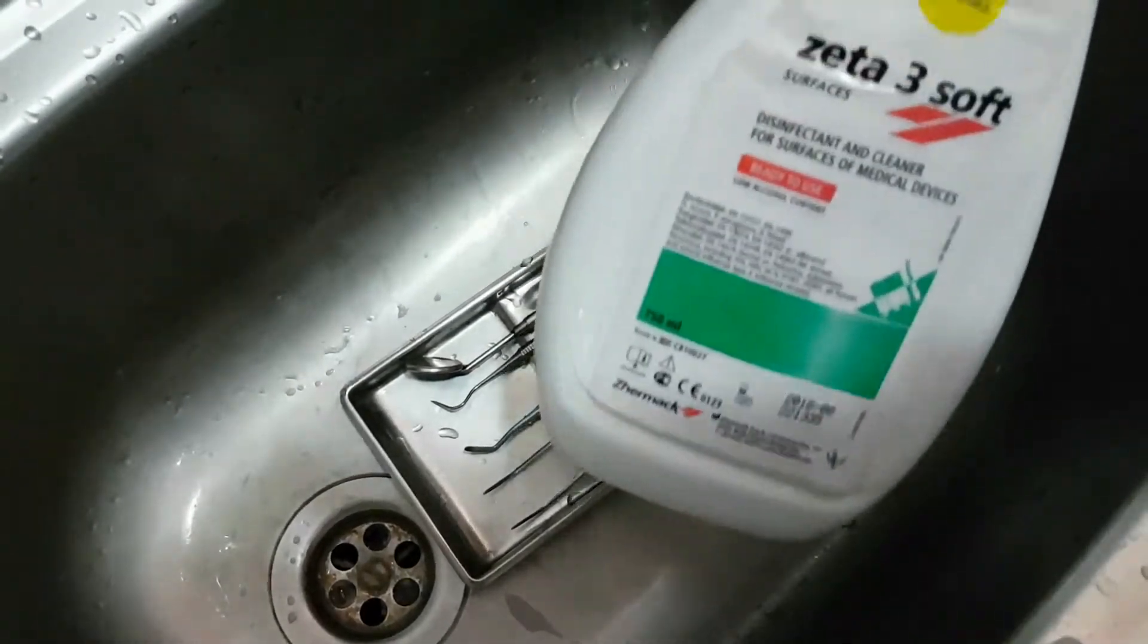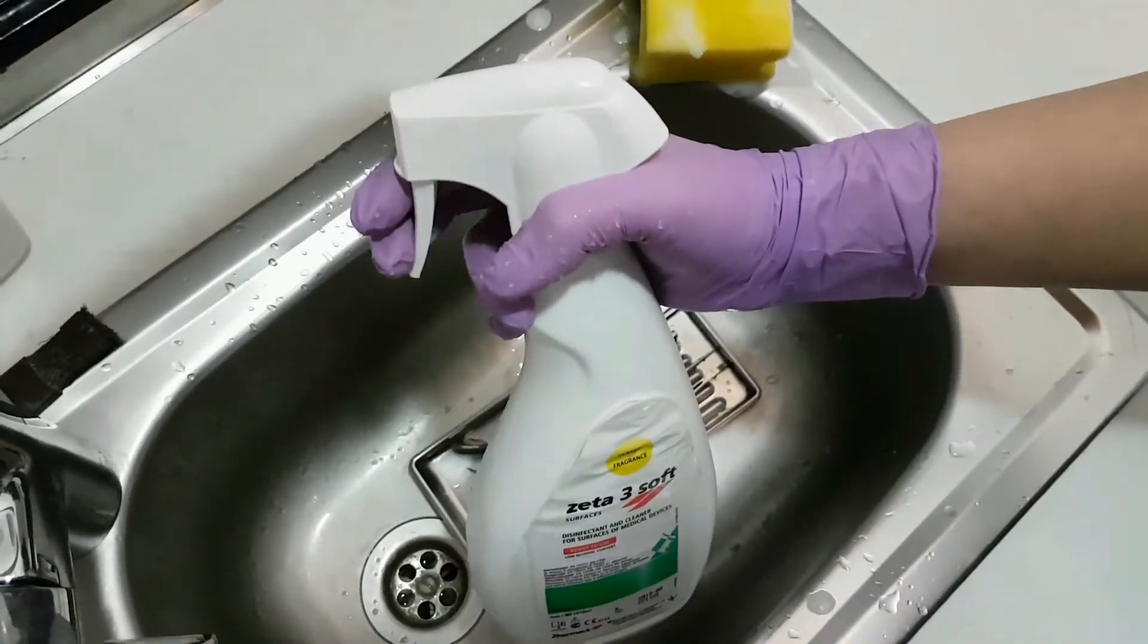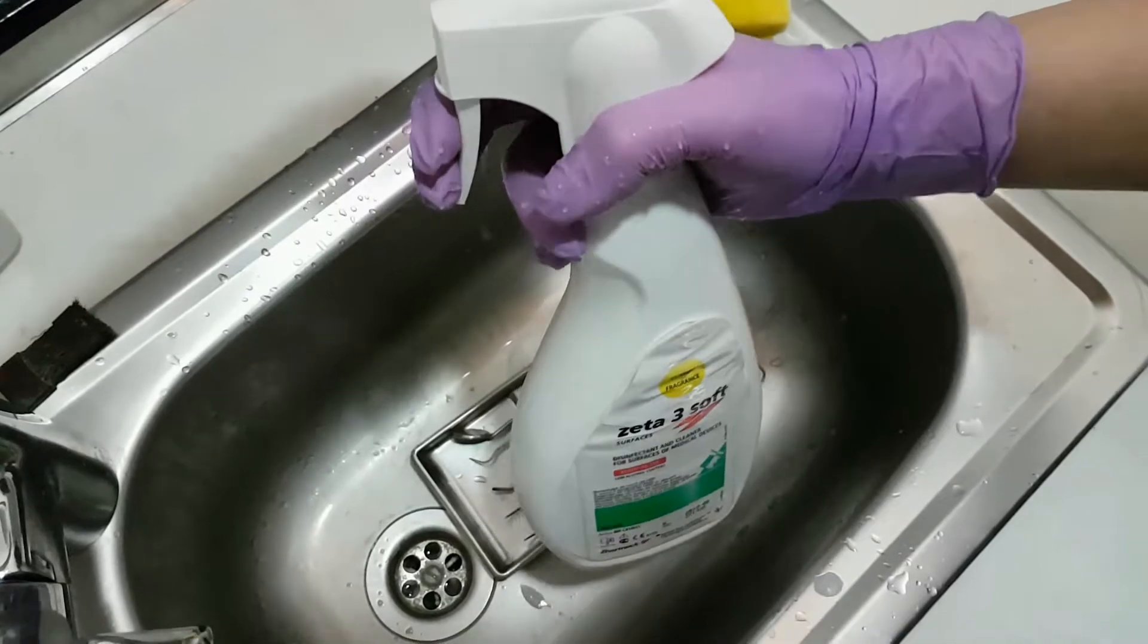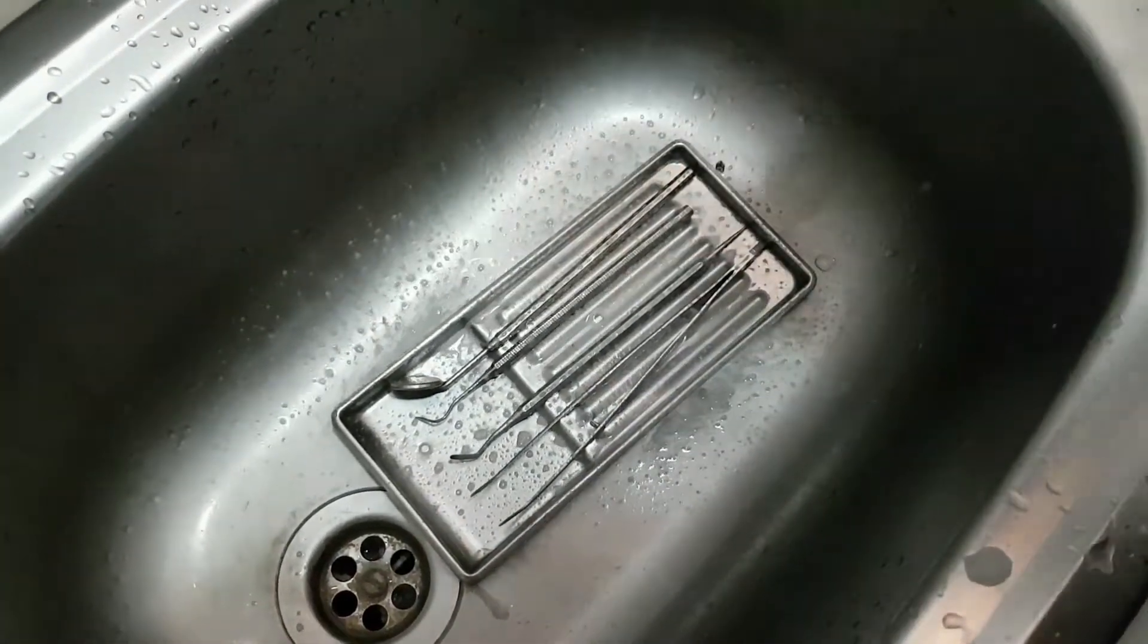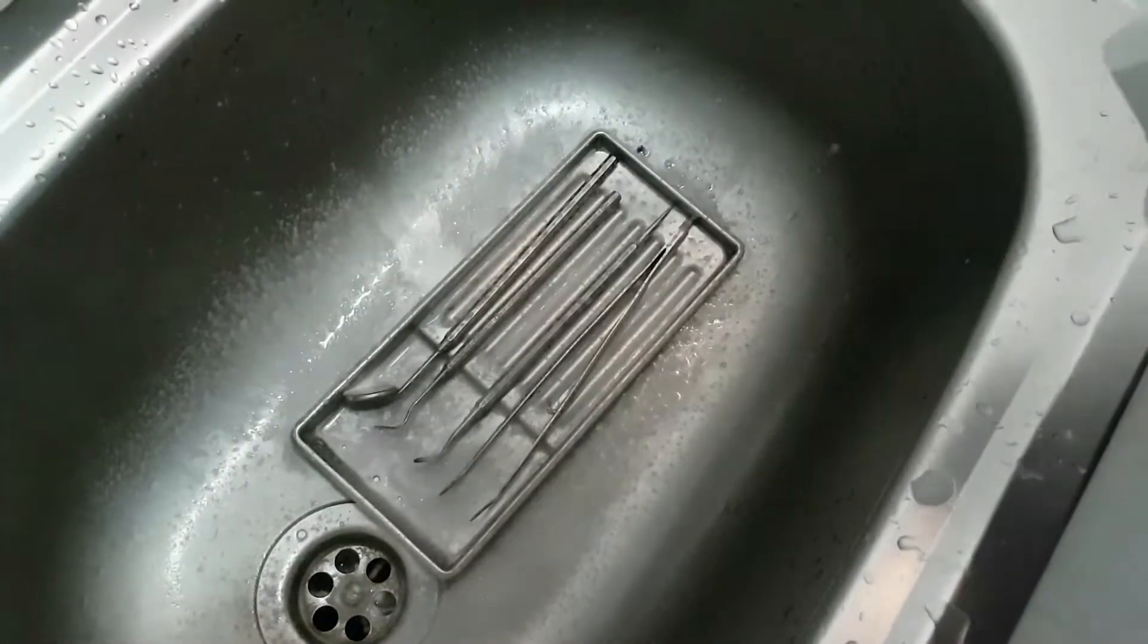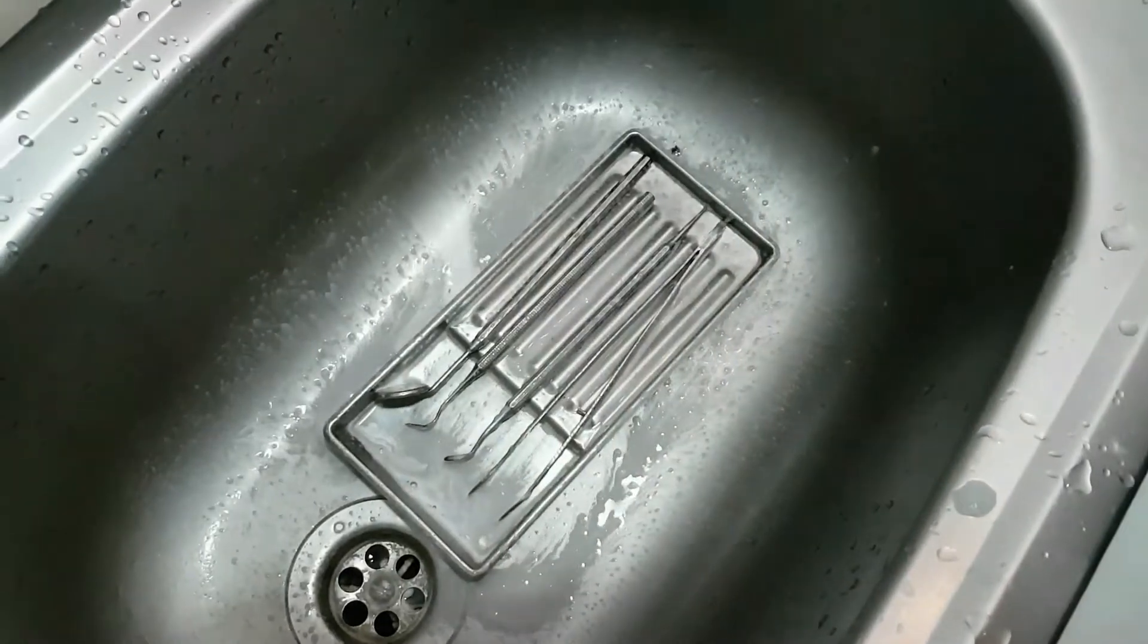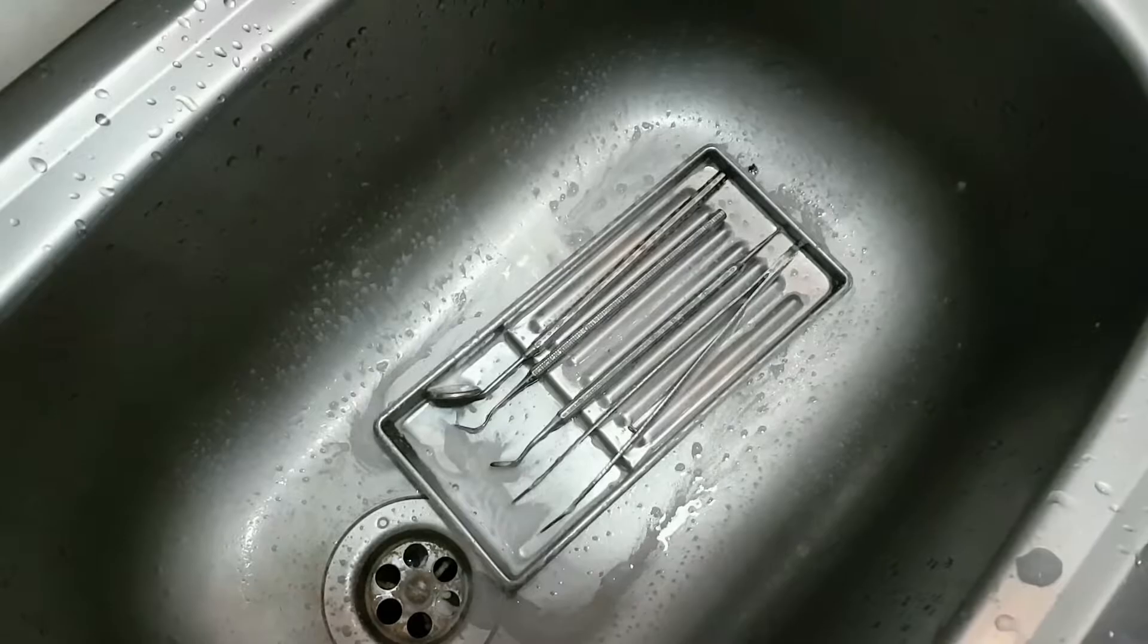Before drying out the instruments, we spray on disinfection spray. So we have maximum clean instruments. Every dentist chooses the disinfection spray that suits them. There are a lot of them out there in the market.